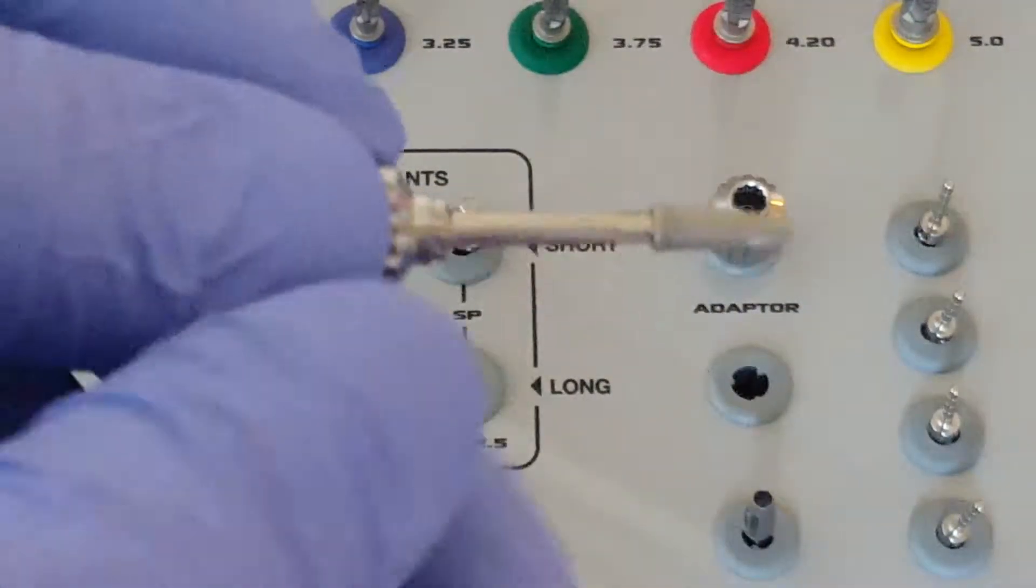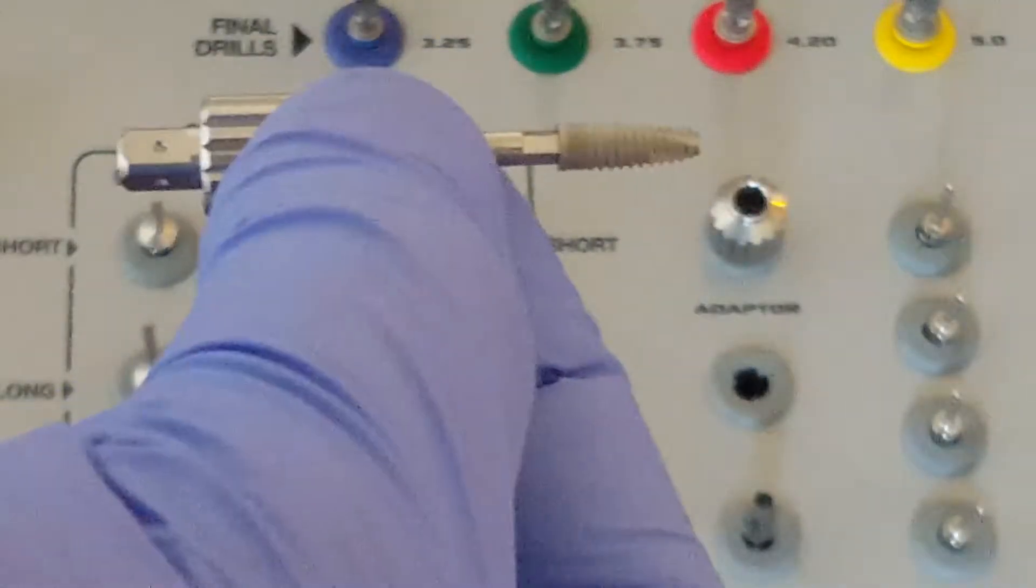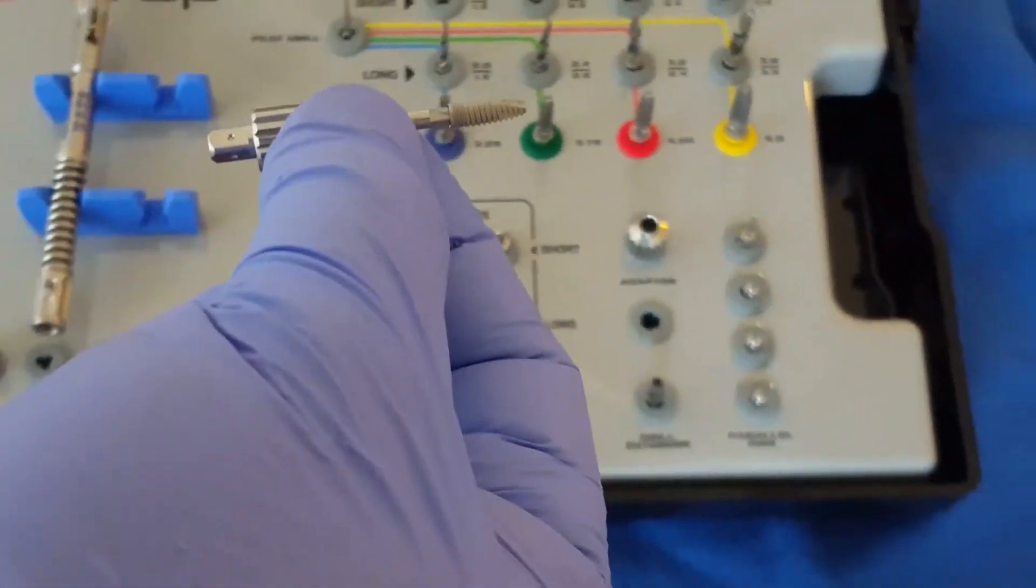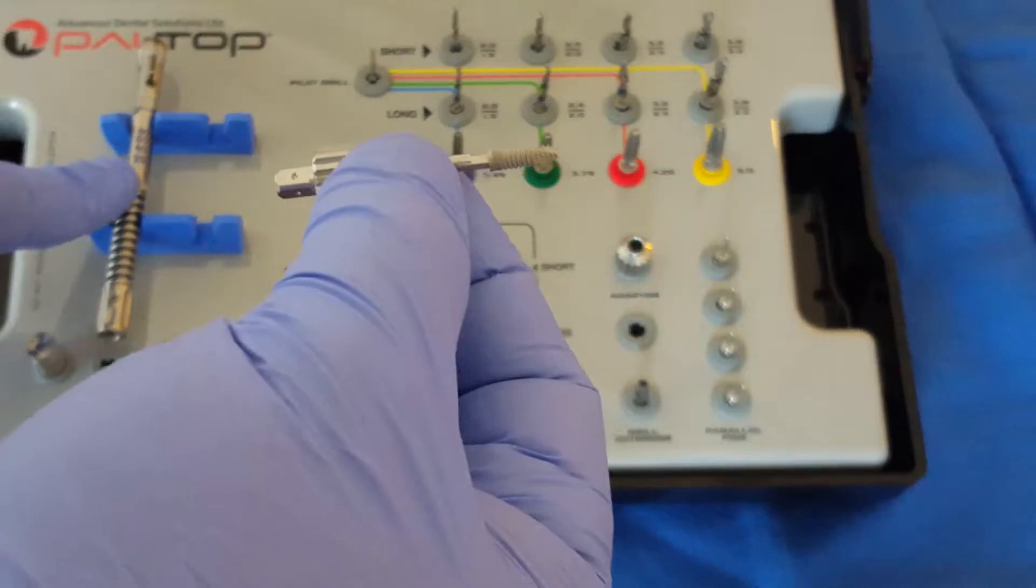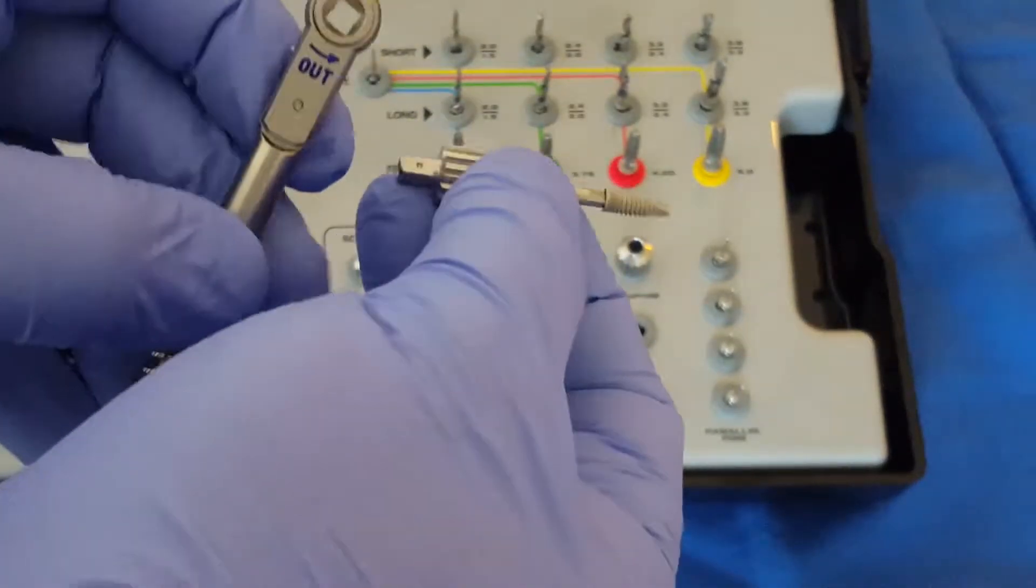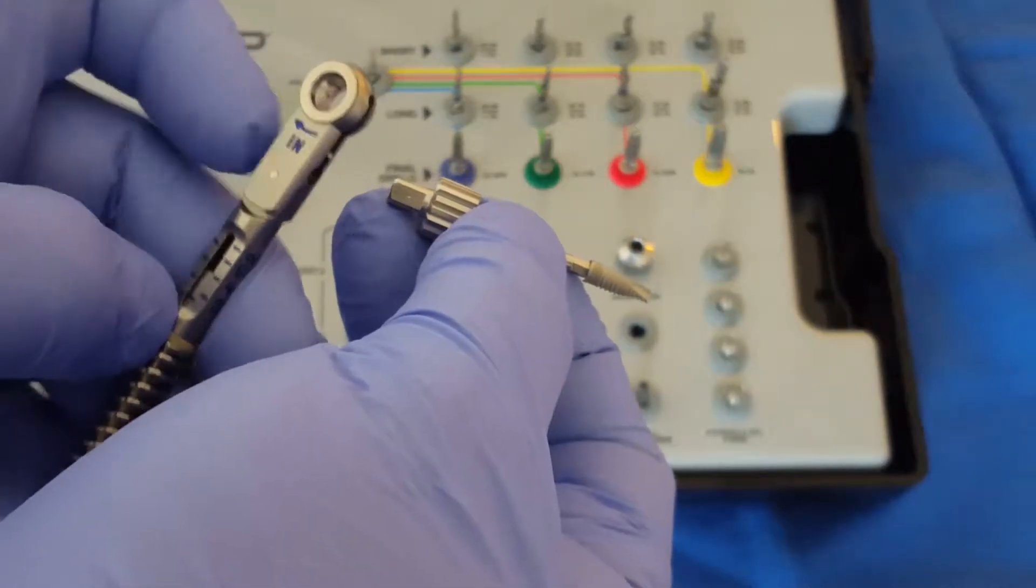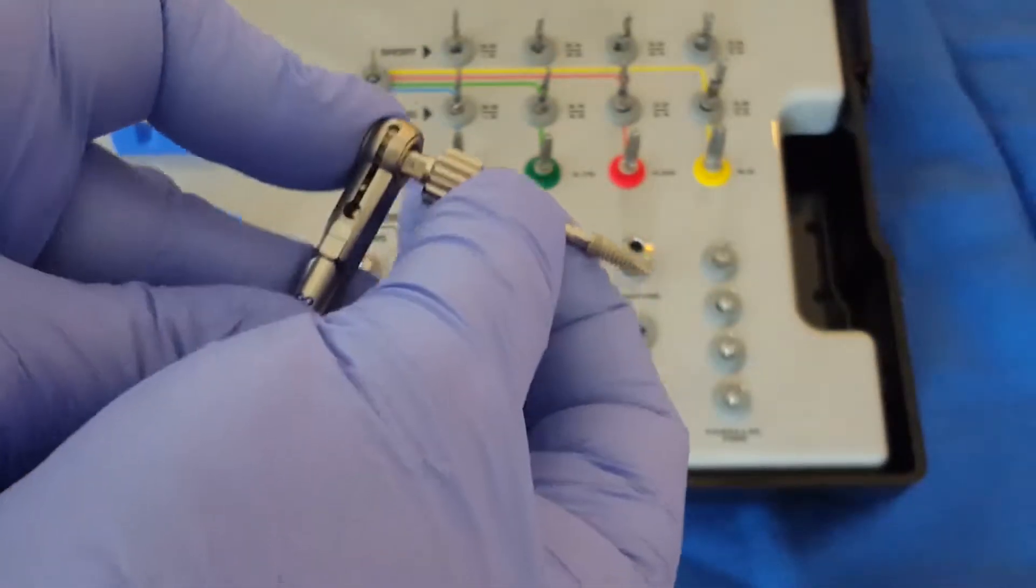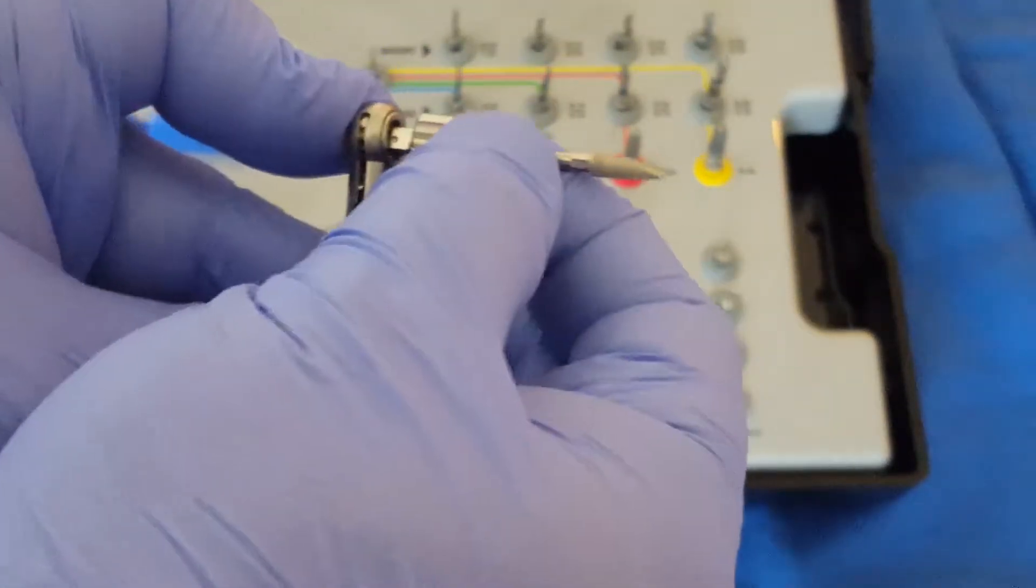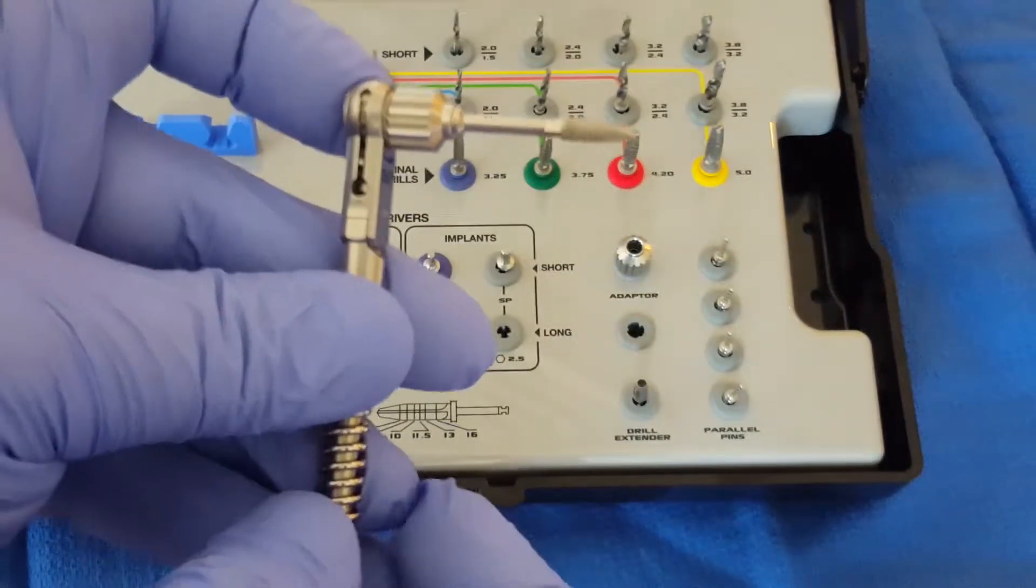Or we can utilize the ratchet. There's a side marked in and a side marked out, so the ratchet fits securely to the driver and it can be ratcheted into place.